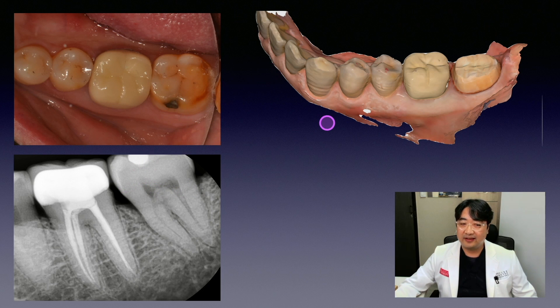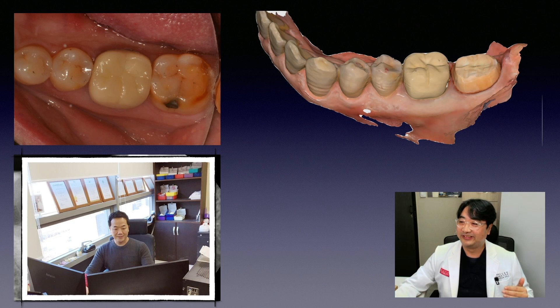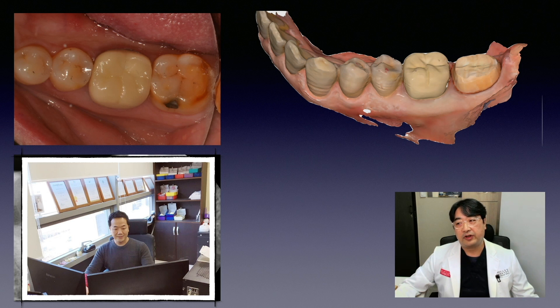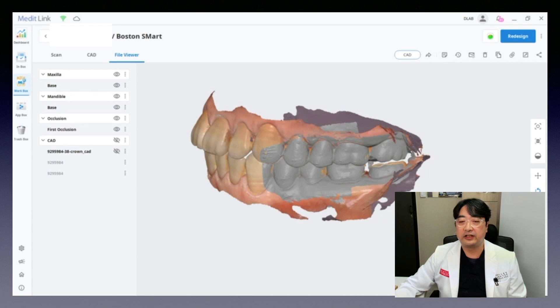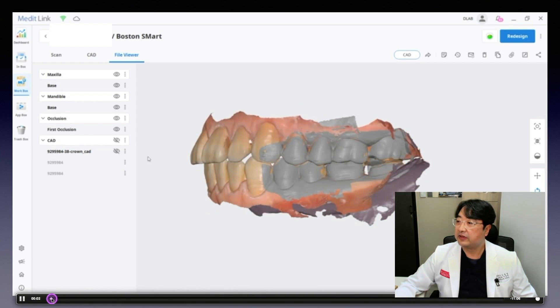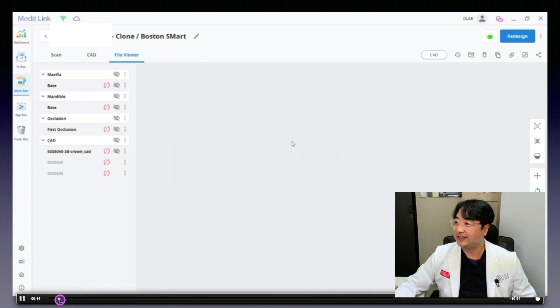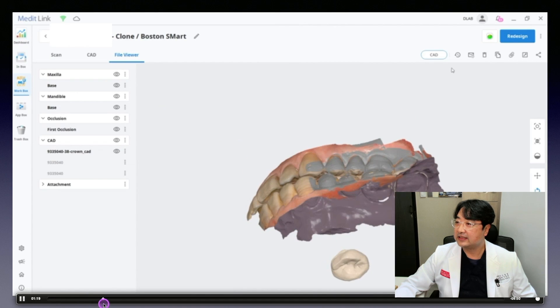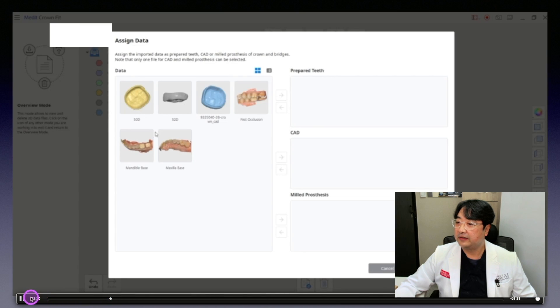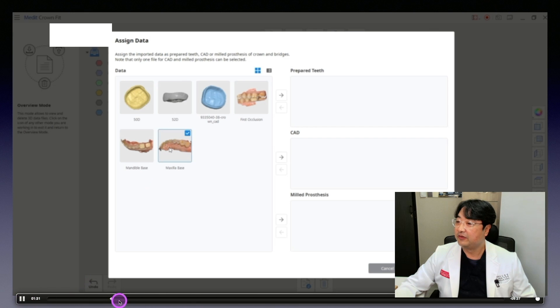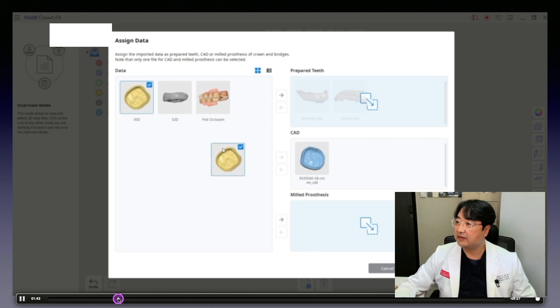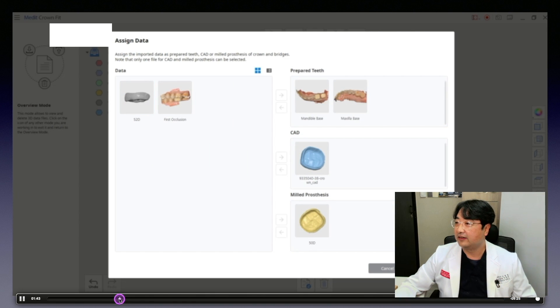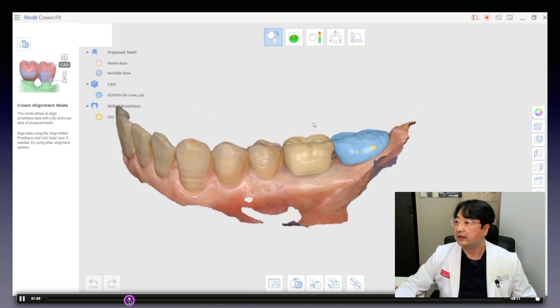I prepared and scanned with the i500, then sent the data to Mr. Gull, a master dental technician I have worked with for more than 10 years. This is a movie clip that he sent me. After receiving the file, he designed the crown, then milled it and scanned the milled crown. So now we have the scanned real crown file, the STL design file, and the data I sent from the intraoral scanner. He then loaded the scanned crown file and the STL file and started to compare them.